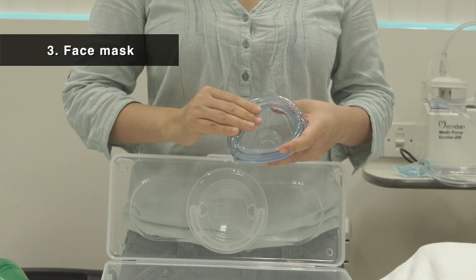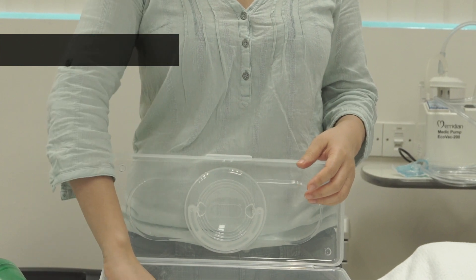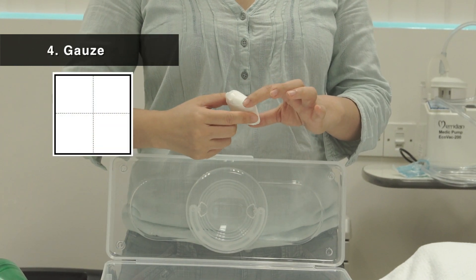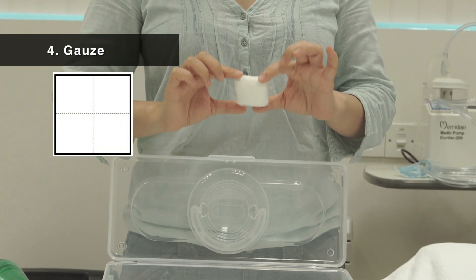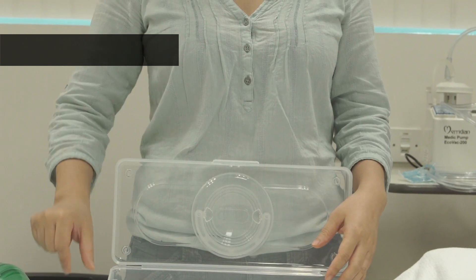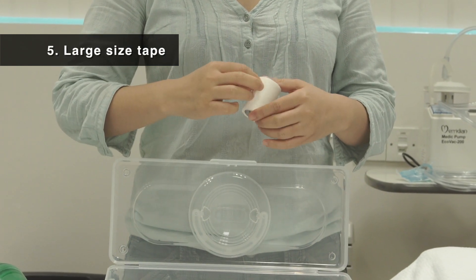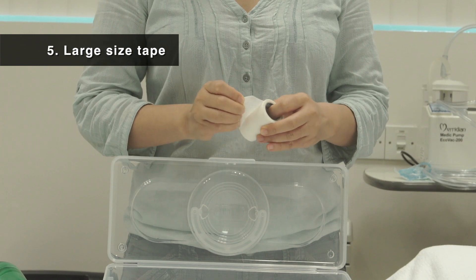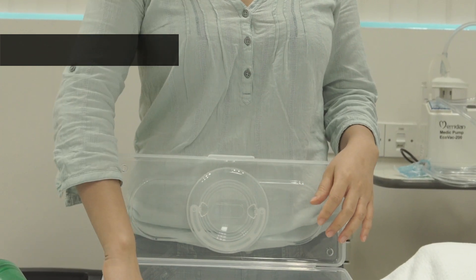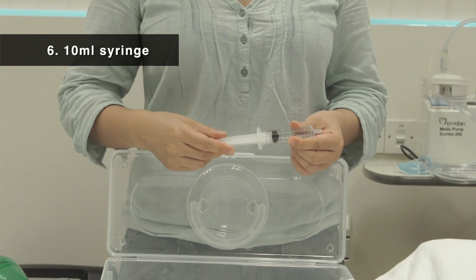The emergency pack should also contain one pack of gauze, which can be pre-prepared into four folds, one large size micropore tape, and a 10 ml syringe.